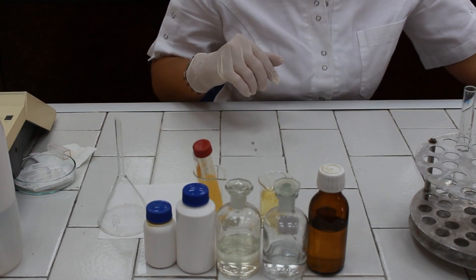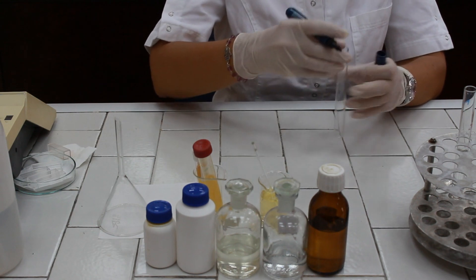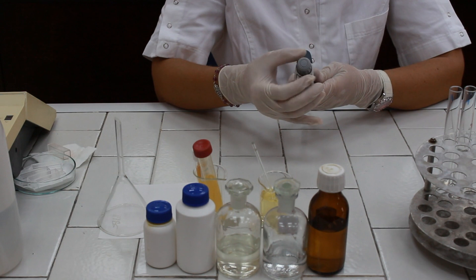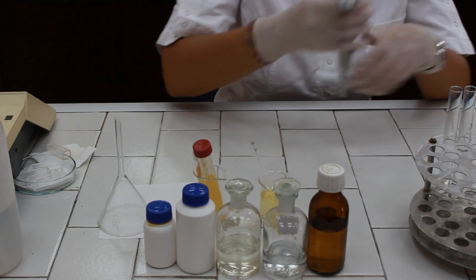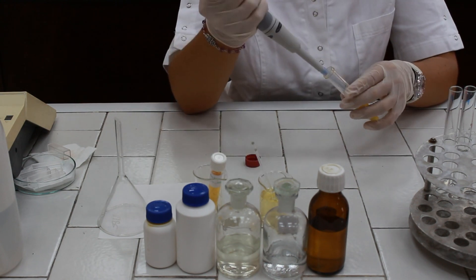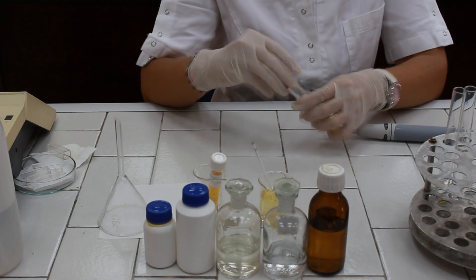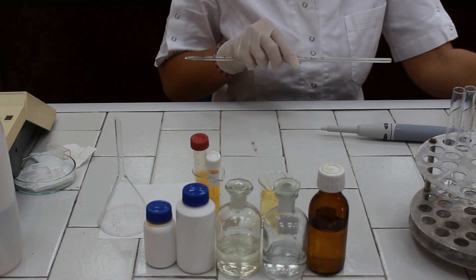Now we are going to take another test tube and mark it as reaction number one, which is going to be the direct diazo reaction. We need to pipette 0.5 milliliters of blood serum or plasma, and then we should add one milliliter of distilled water.